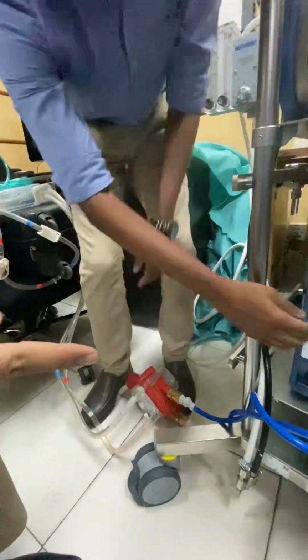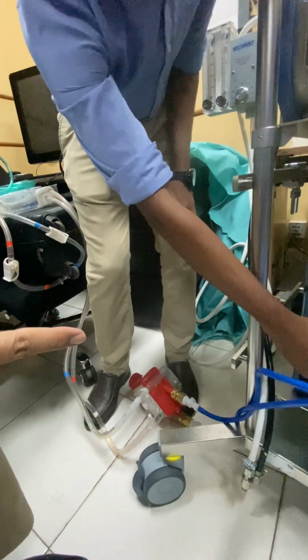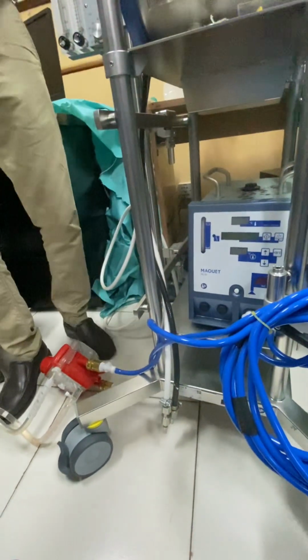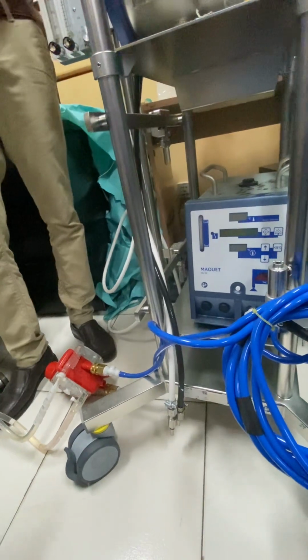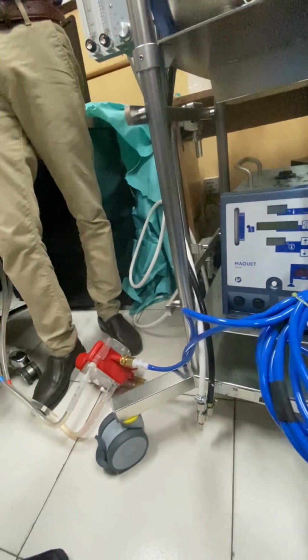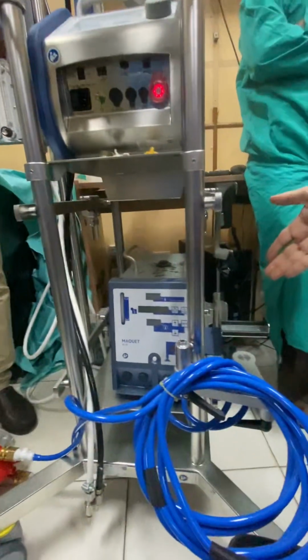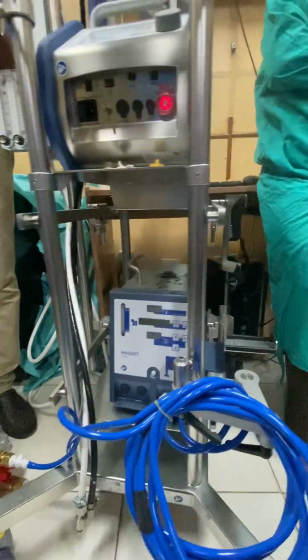नहीं इसमें पानी है ना, ब्लड नहीं है, इसमें पानी है. अच्छा इसमें पानी है. सर, blood will only go through the disposable. तो ये वाला सिर्फ वार्म करने के लिए ही पानी यूज होगा. ओके. हीटर ही हुआ ना बेसिकली। हीटर है। It's a heater unit.